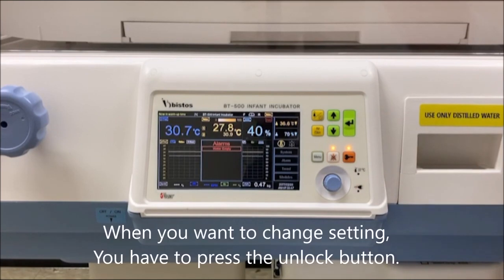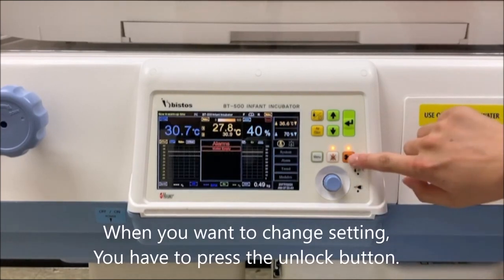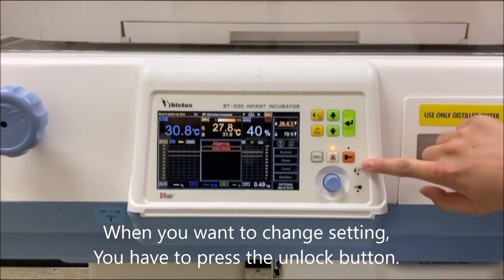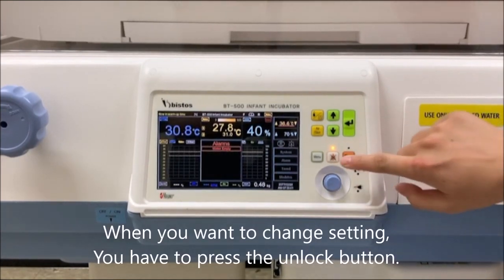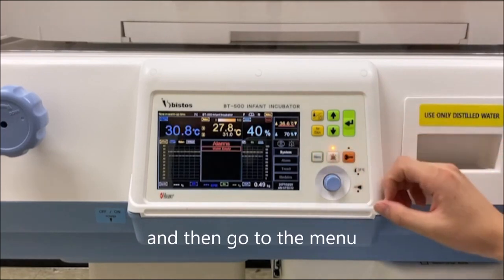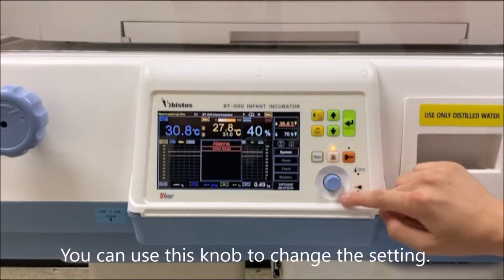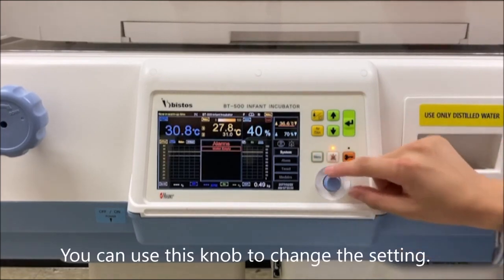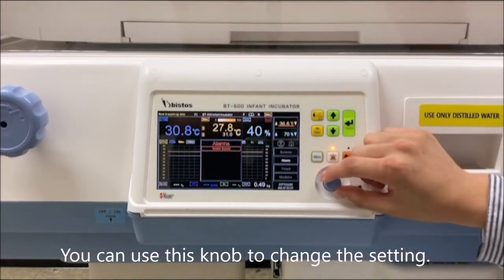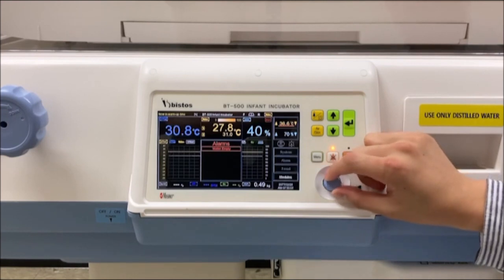When you want to change the settings, you have to press the unlock button, and then go to the menu. You can use this knob to maneuver to the different menus.